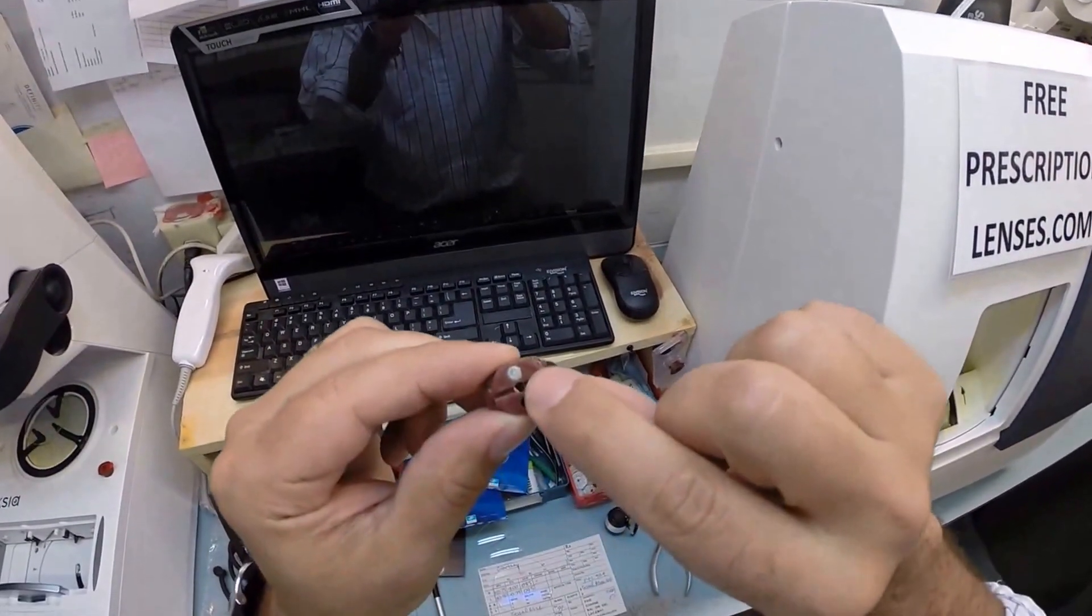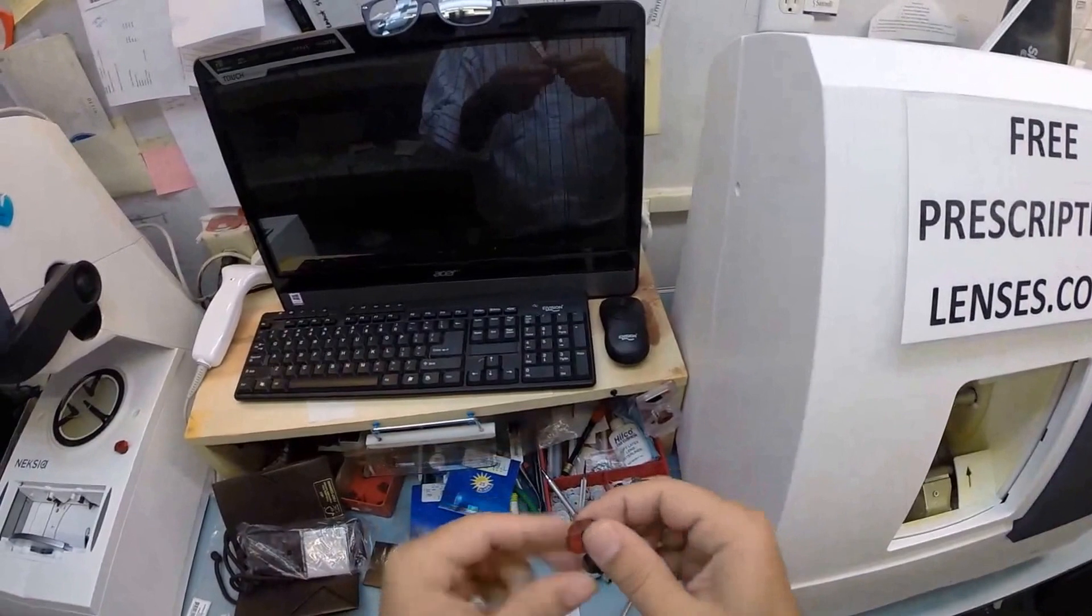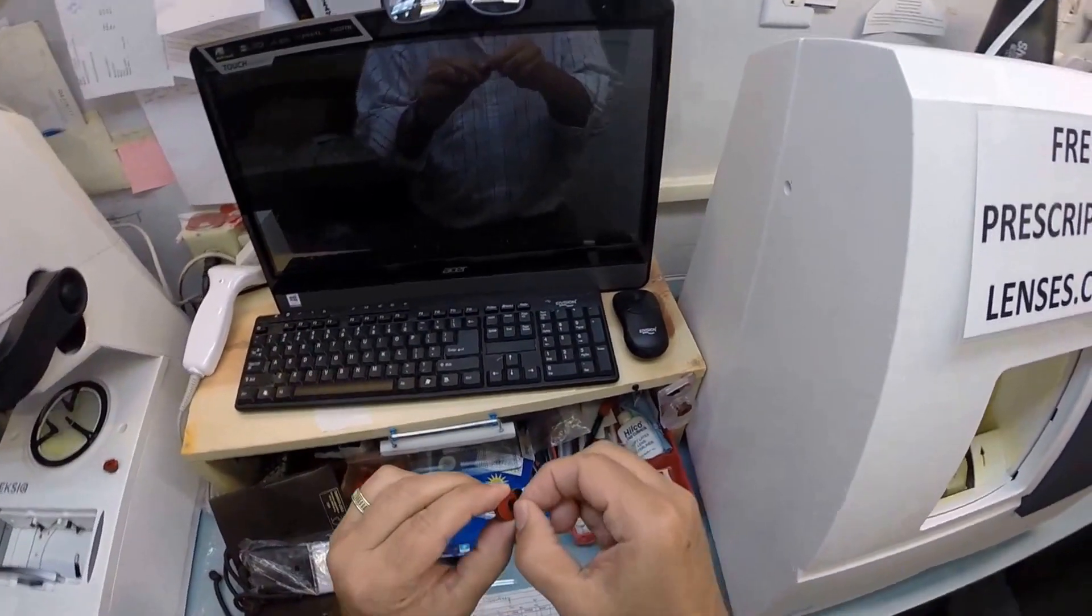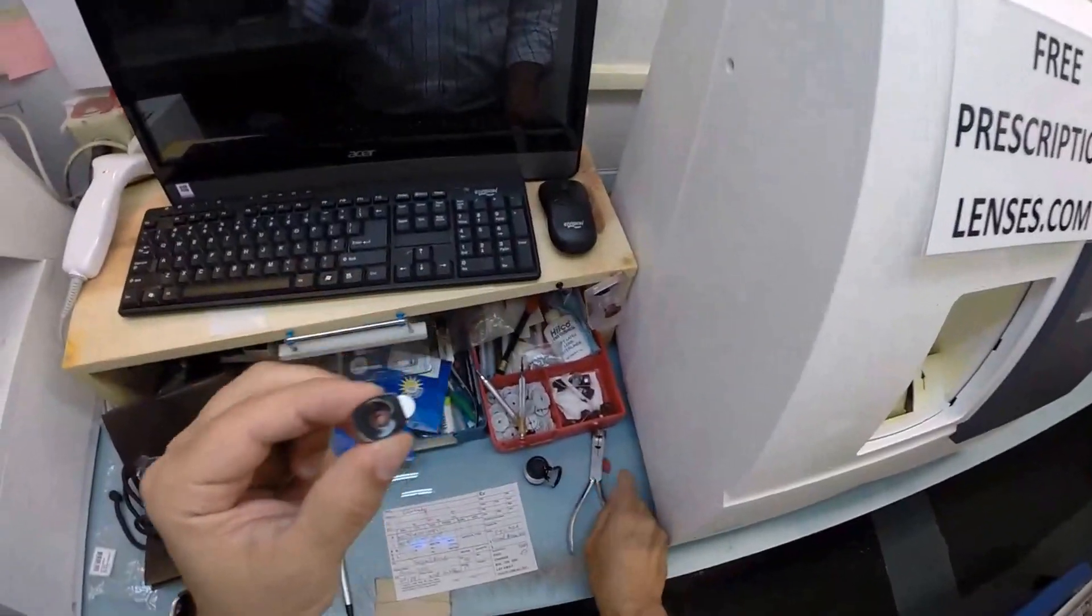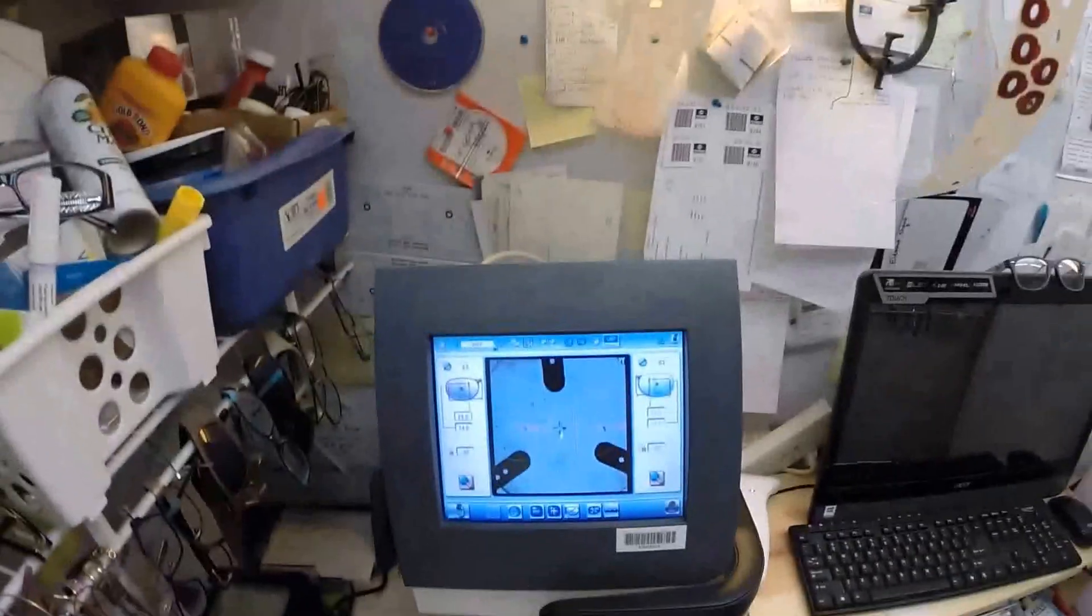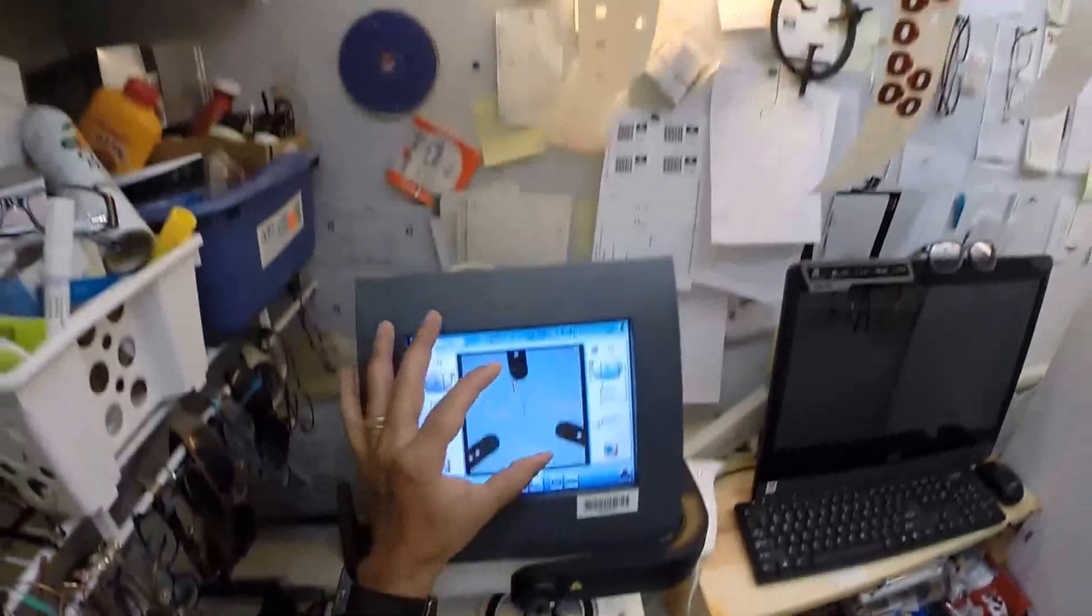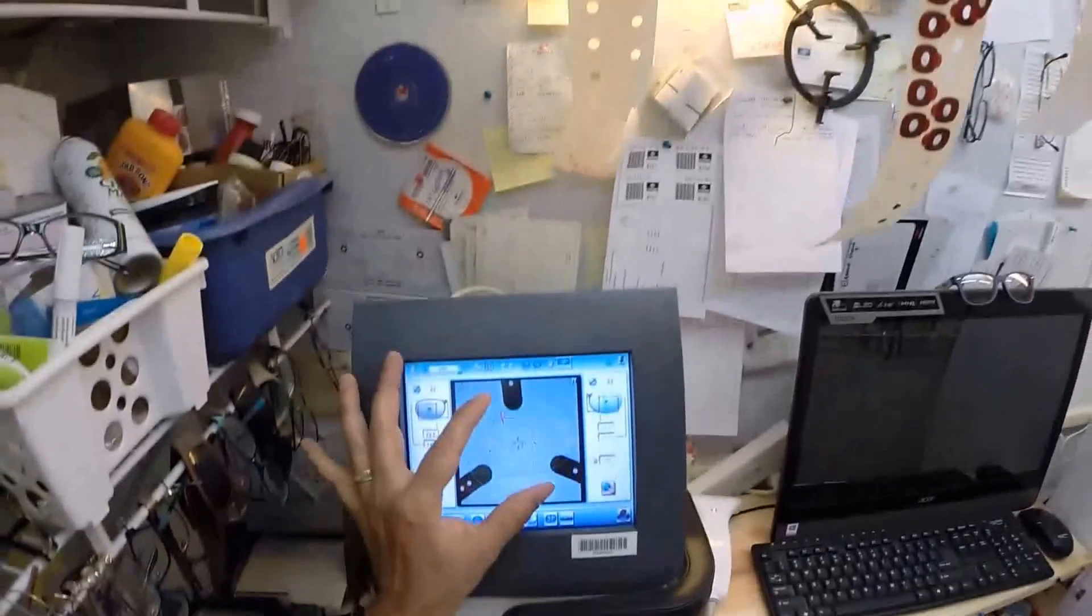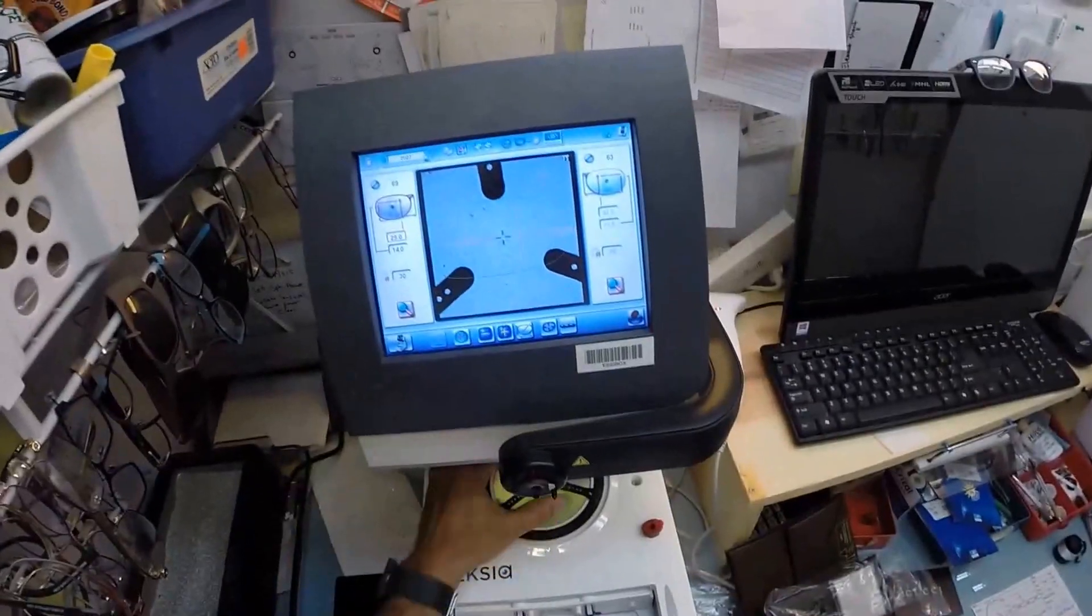Now the back side of this has a little silver button. That is a magnet. It's going to do its job twice tonight. The first time being now. I'm going to pull the paper away to make the black side sticky, line that up in the arm. Now the reason why I put the three red dots on there, I have to orient your lens in there and your frame perfectly for you to see your best because of your astigmatism.